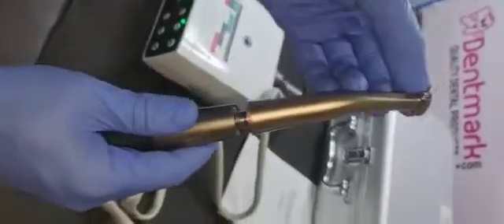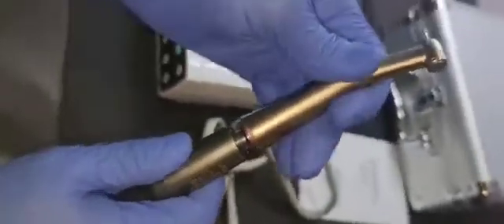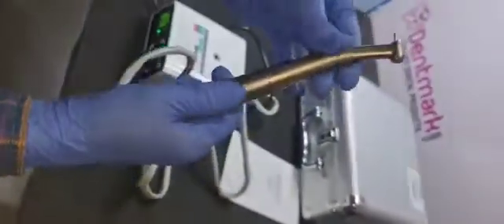Only the air rotor bur. High-speed air rotor bur will go here. Fix it. Rotate the motor. It will lock inside.